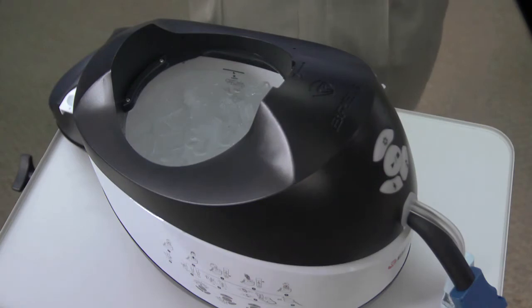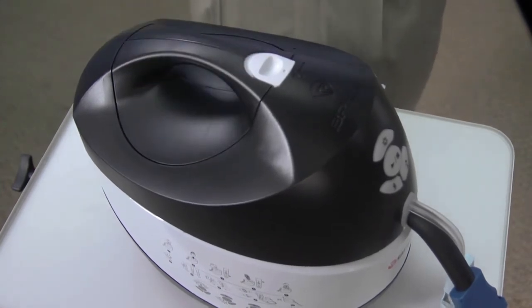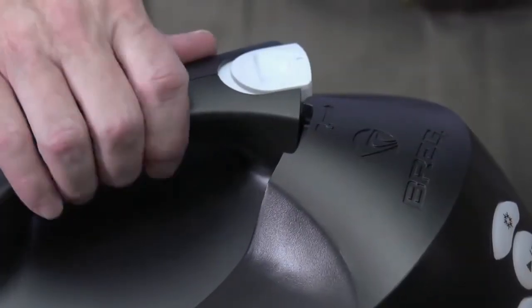Once the container is filled, close the V-Pulse by replacing the handle, aligning the dot on the thumb lock to the top cover, and rotate clockwise, listening for the positive locking click.